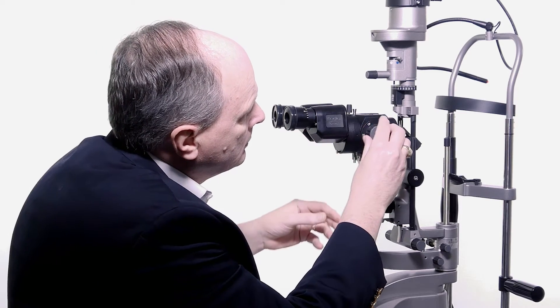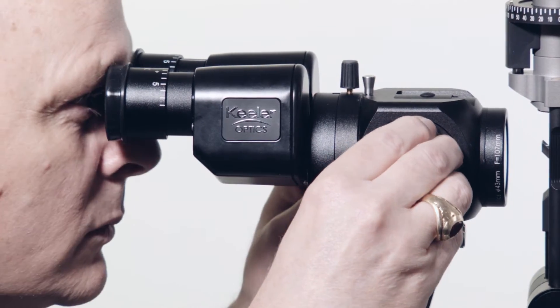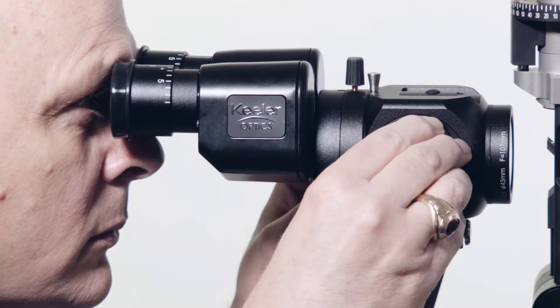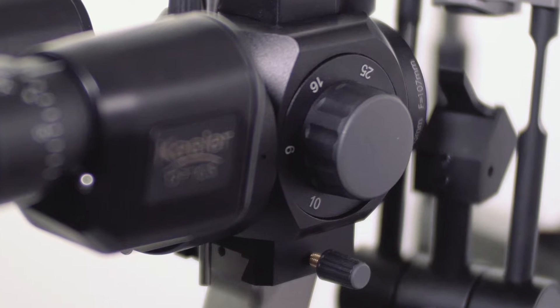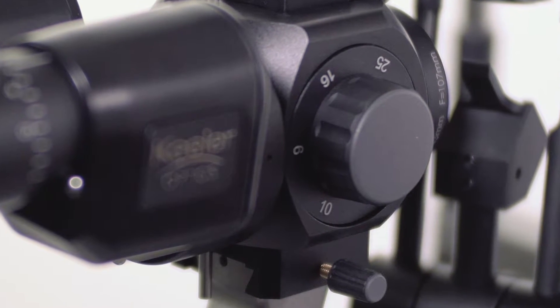Magnification is adjusted using the 3- or 5-step drum here. Magnification ranges from 6x to 40x on the 5-step drum and 10x to 25x on the 3-step drum.